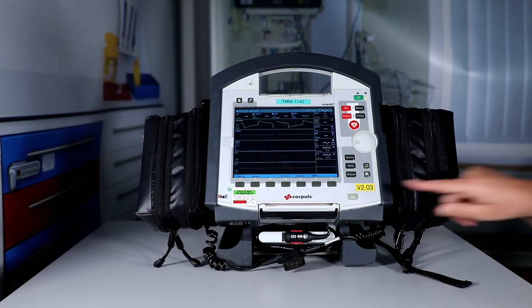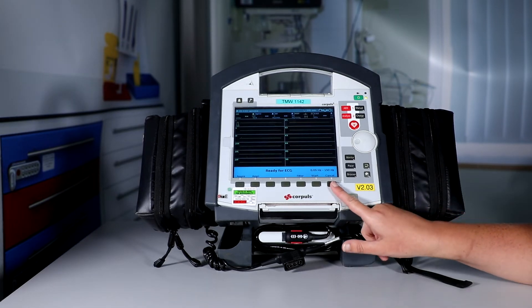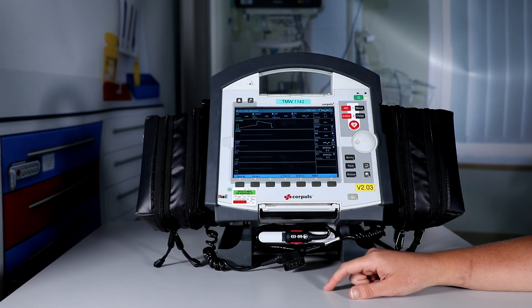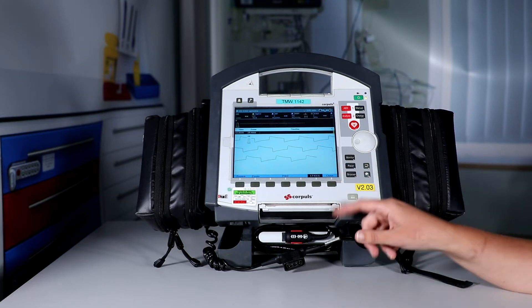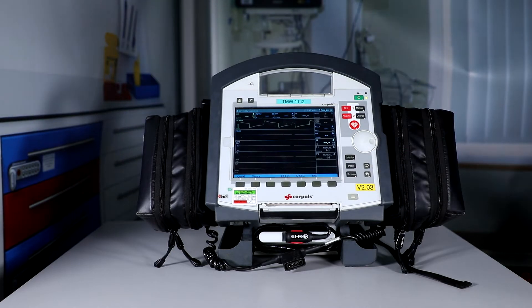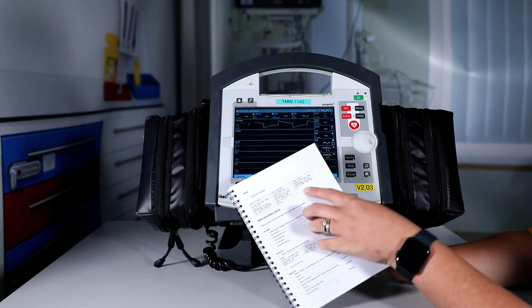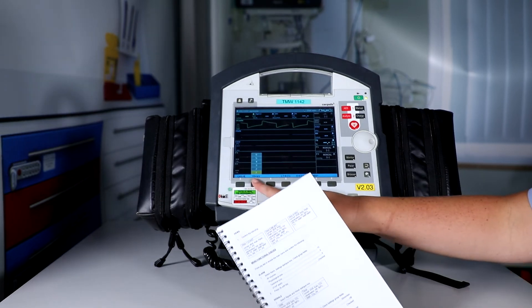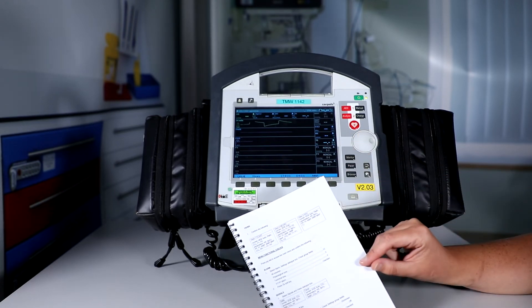Then we're going to check the diagnostic ECG by pressing this button here — we should see that all the sockets activate the 12-lead measurement, which it did. Once happy, we come out of that screen by pressing the cancel button. Then we press the LT ECG screen, just checking that that comes up, and then press the monitor button. The next thing is to check the views — press the views button and as per the 373, check that as we change the views the parameters are present on each view. We press view one, view two, and confirm, checking they all come into alignment with the 373.